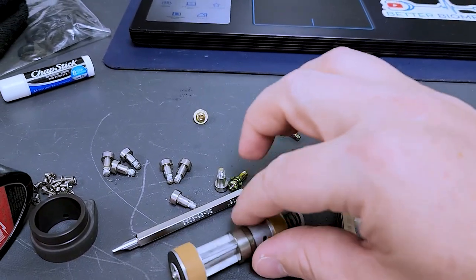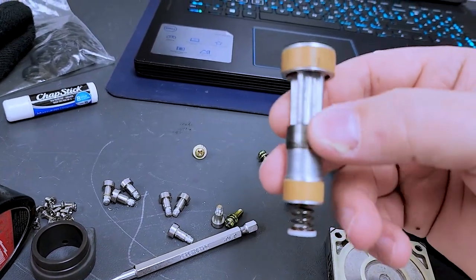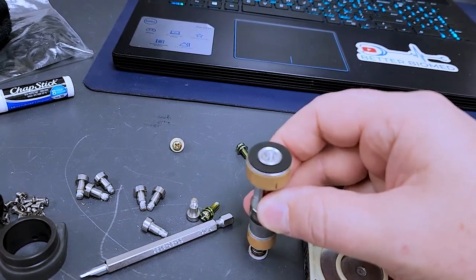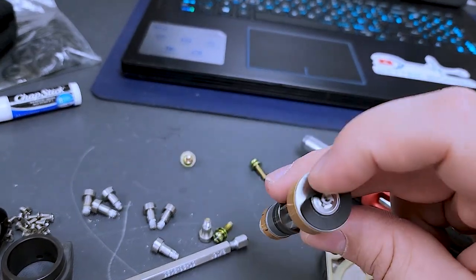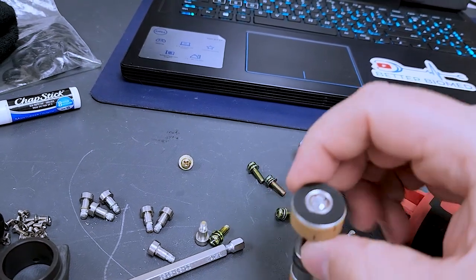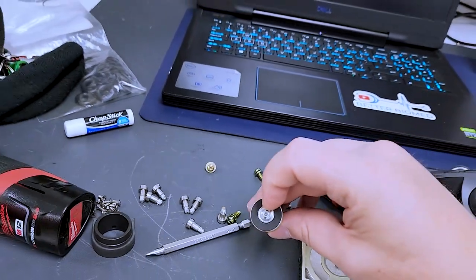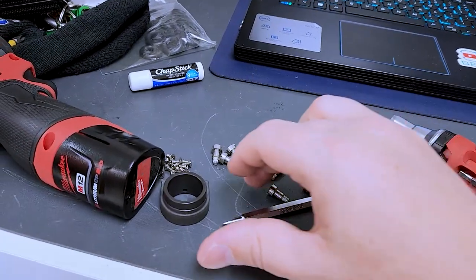But it is a solenoid piston pump. And here we go. So, here's the solenoid. It's got a return spring right there. You have an inlet right here. So, this is your air inlet. Make sure there's no dirt underneath it. Can't pull it off because it's got a snap ring. There we are. This is the sleeve.